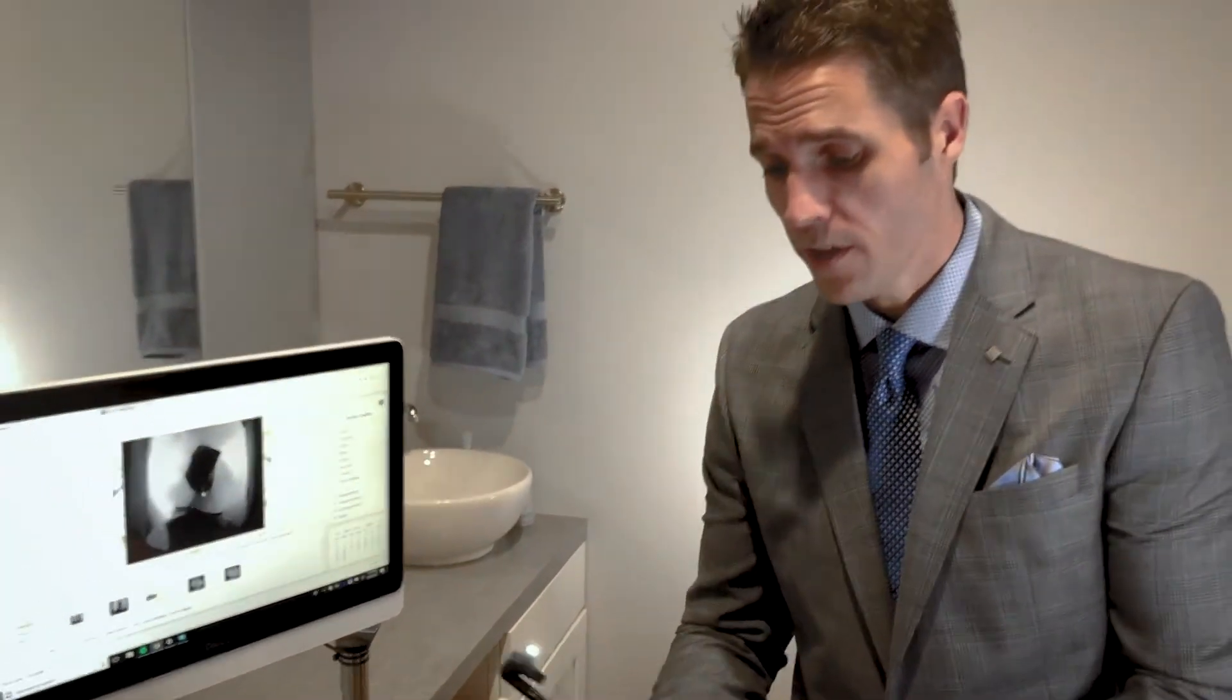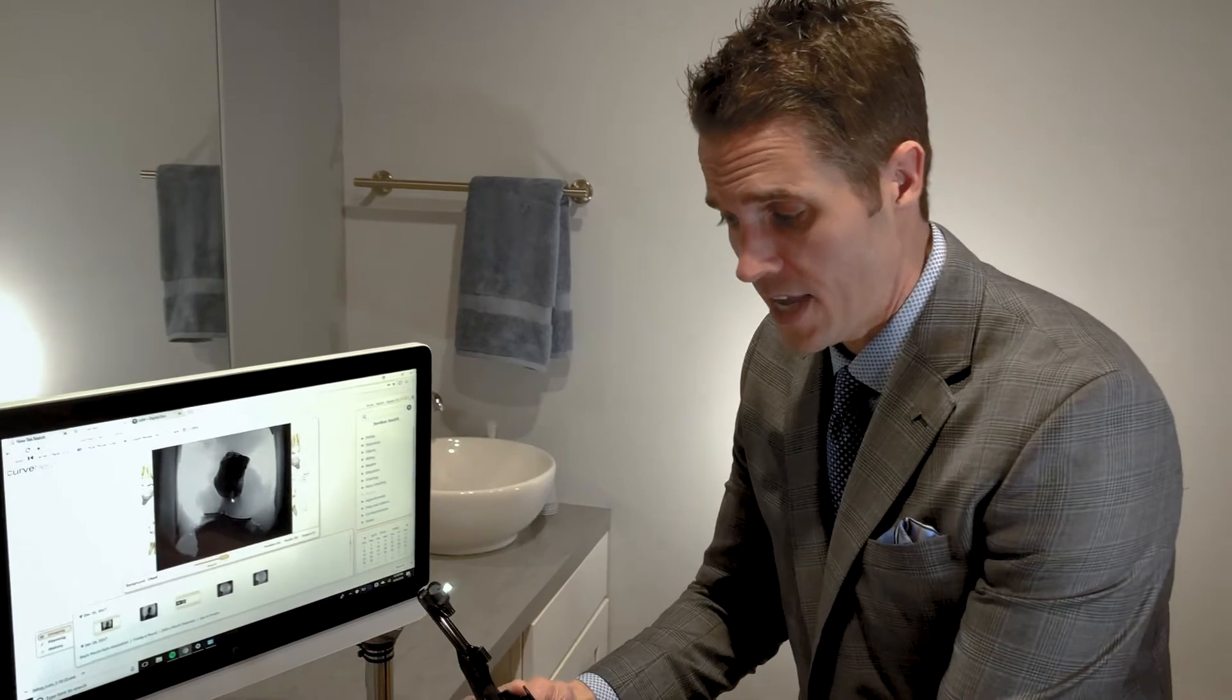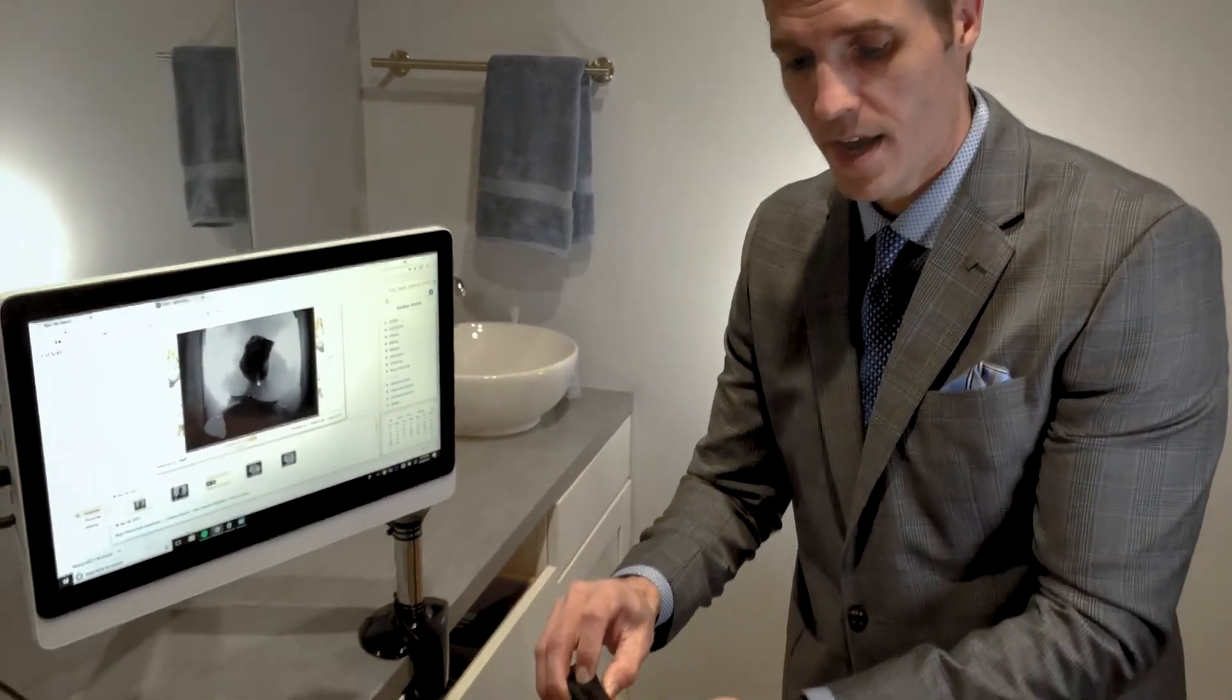It's as simple as that. With the device, take it off, turn the light back off.